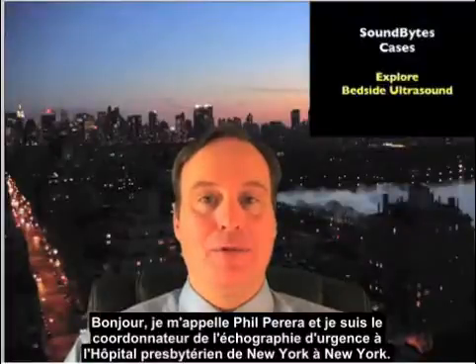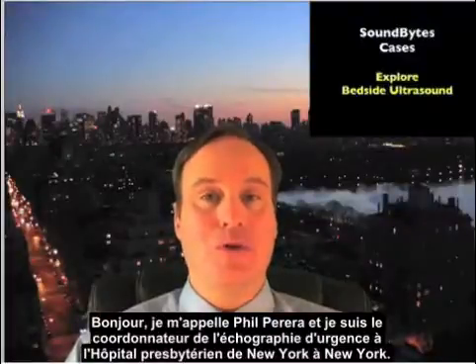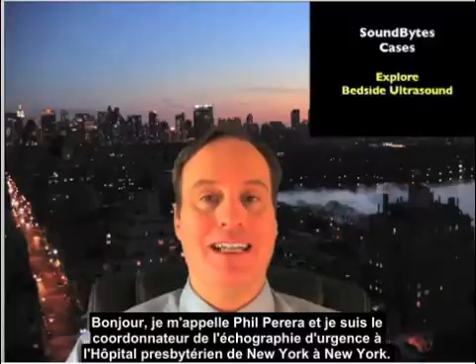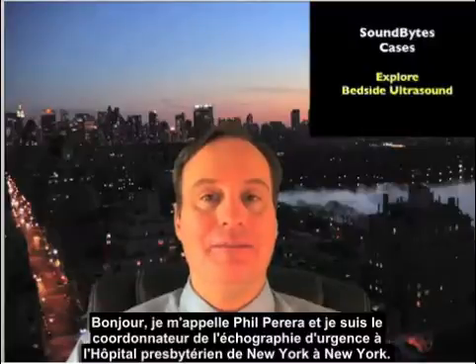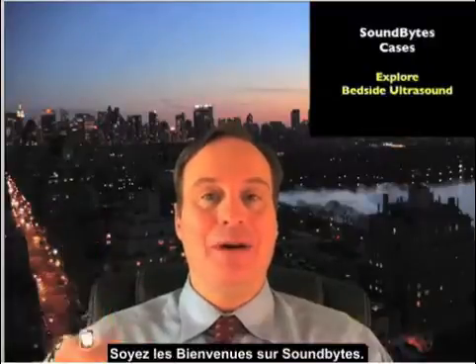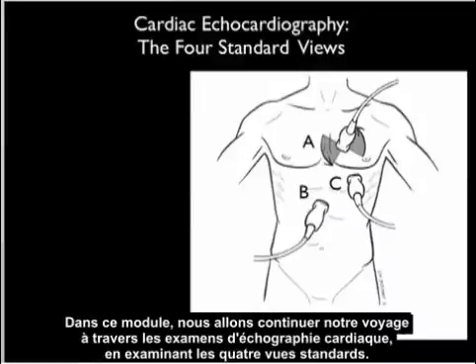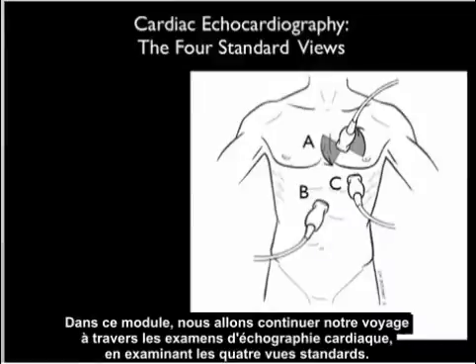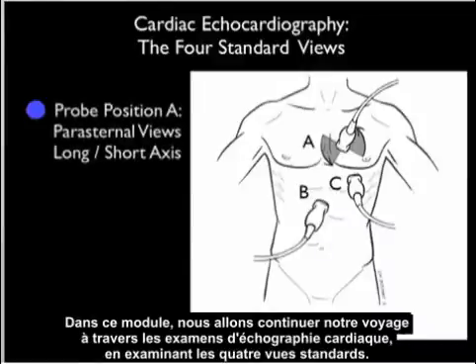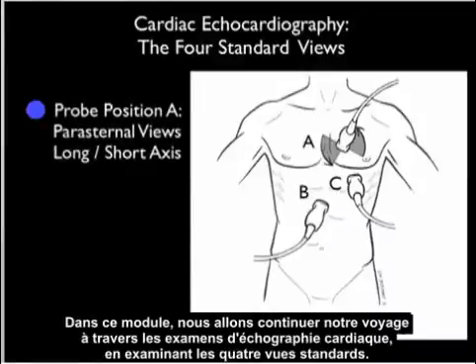Hello, my name is Phil Pereira, and I'm the Emergency Ultrasound Coordinator at New York Presbyterian Hospital in New York City. Welcome to SoundBytes Cases. In this module, we'll continue our journey through the cardiac echocardiography examinations looking at the four standard views.